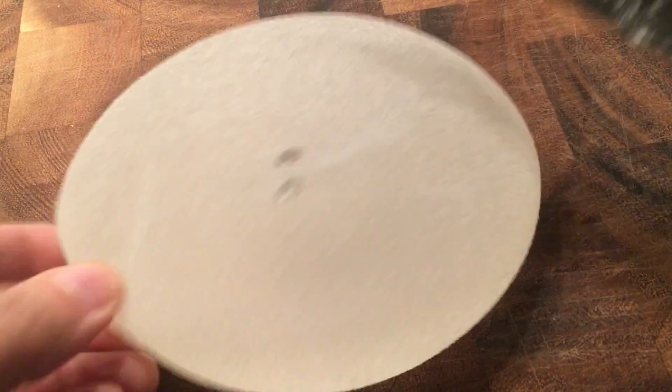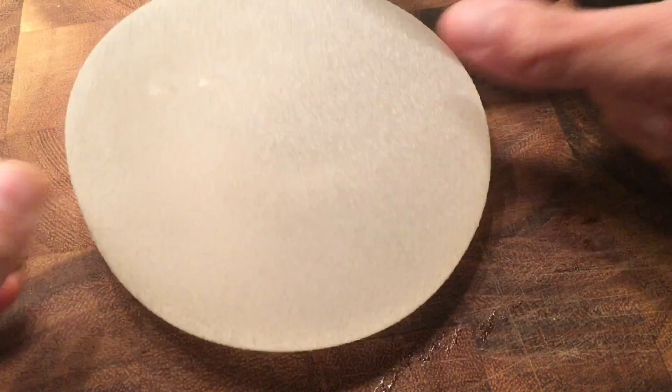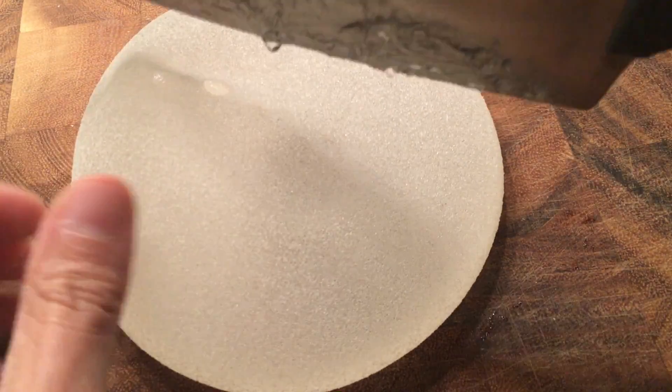Okay, so now we're going to move on to the cohesive implant and so I'm going to cut this.